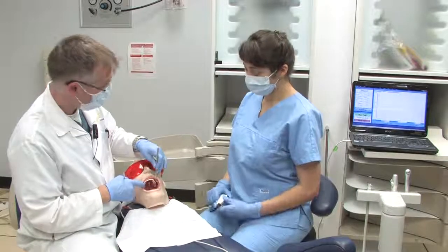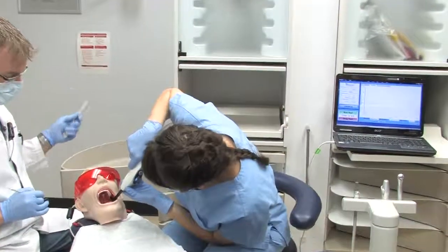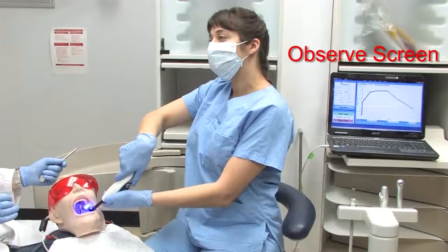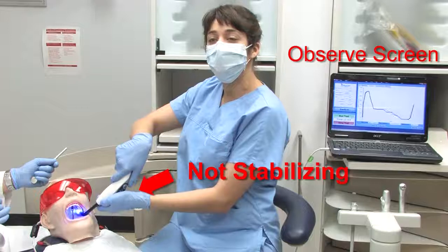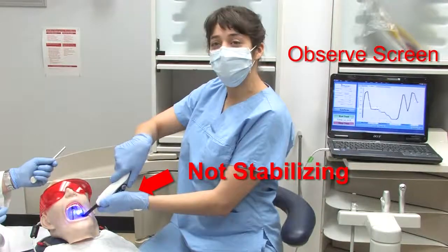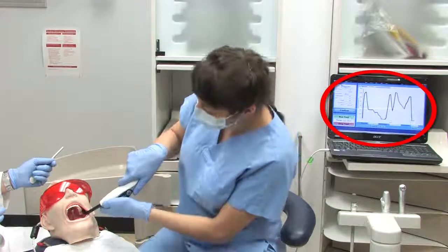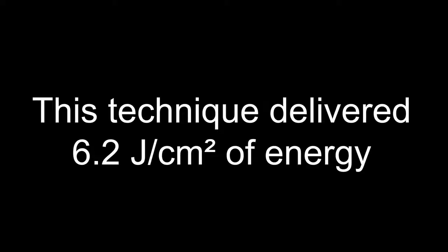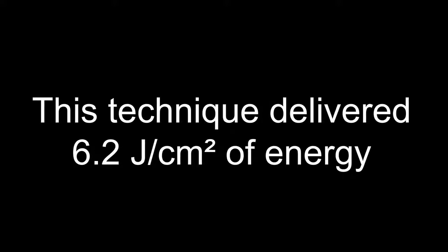Sonia is asked to cure tooth number 27. During curing, a distraction occurs — a colleague asks Sonia to help with an impression next door. This technique delivered 6.2 joules per centimeter squared of energy to the simulated restoration in the posterior tooth.